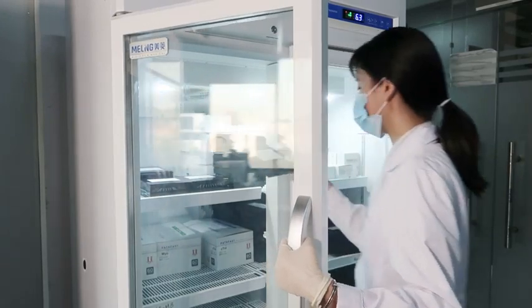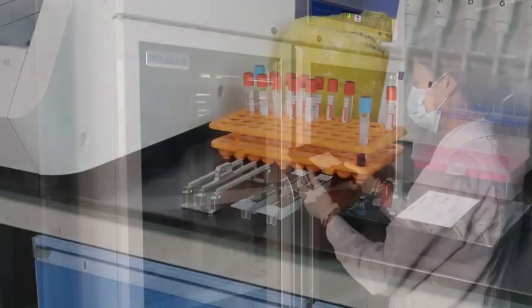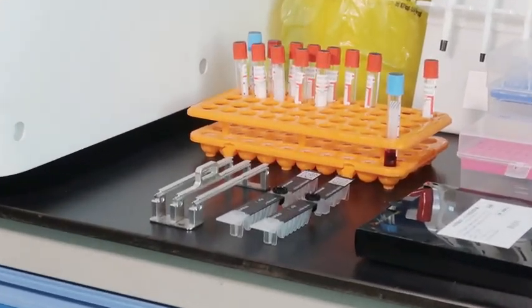First, preparation. Take out the reagent from the refrigerator. Return it to room temperature, about 10 minutes.